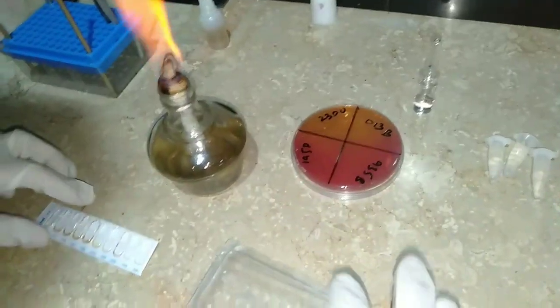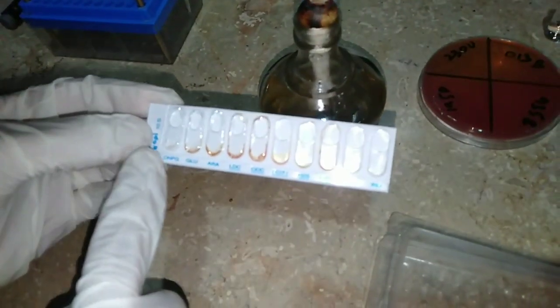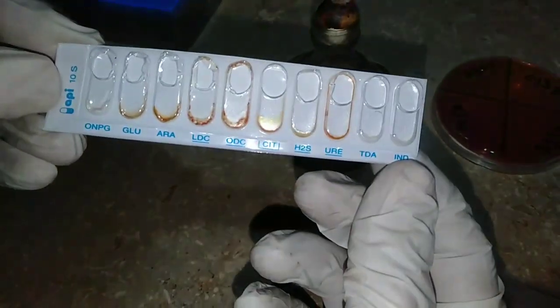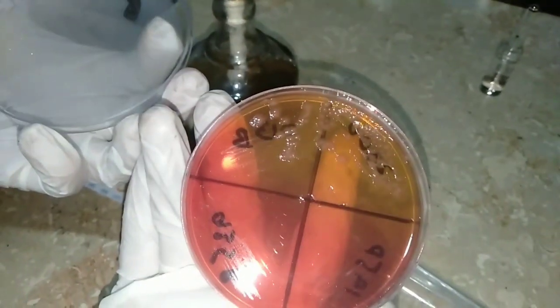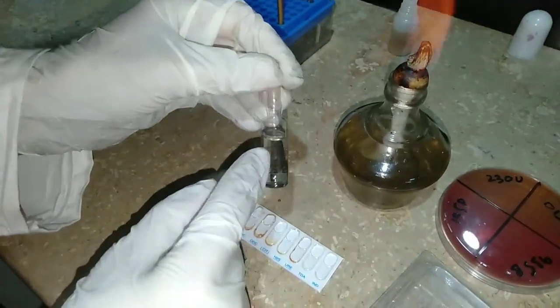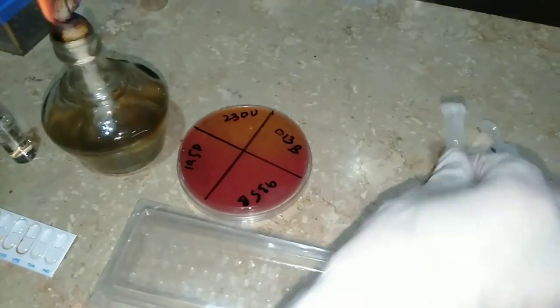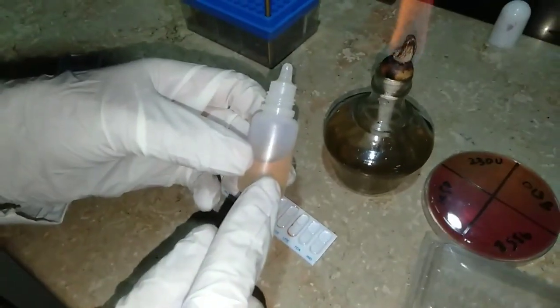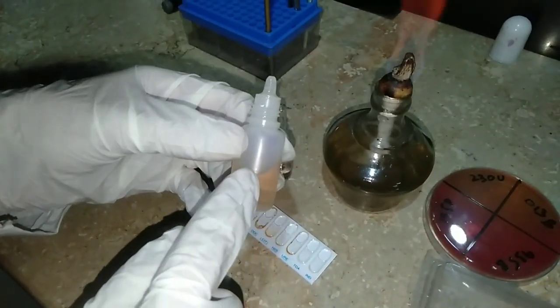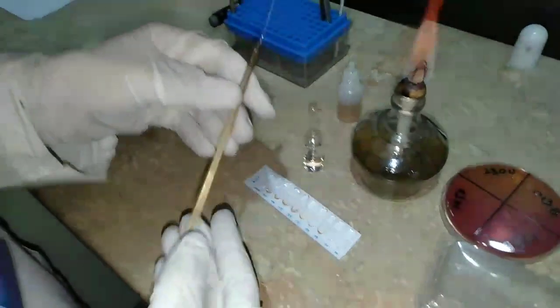Now let's see what we require while performing this test. We need gloves, a bacterial colony, and an API strip — this is the API strip which contains 10 tests, this is API 10. We also need a spirit lamp, the unknown bacterial culture (which is a GNR), sterile water to mix our bacterial colony, distilled water already poured into the tube to load into the API tray, and oil immersion.